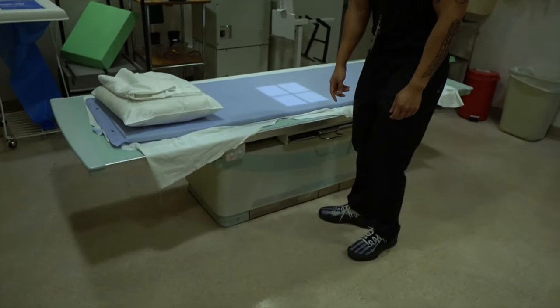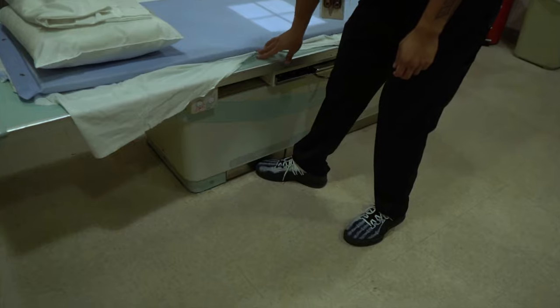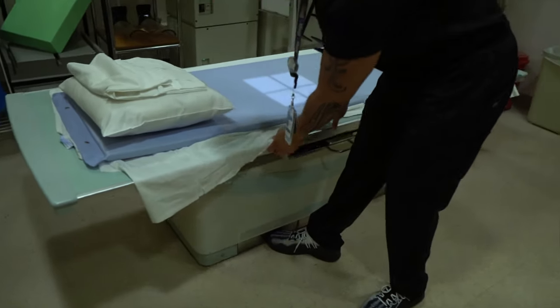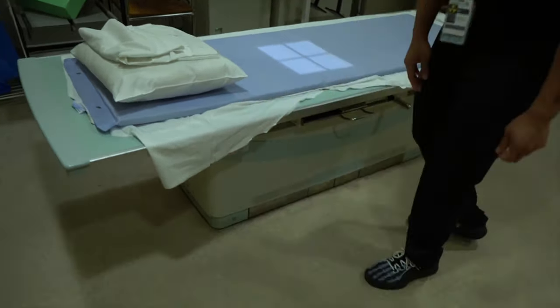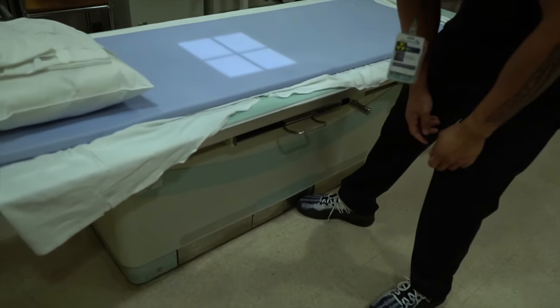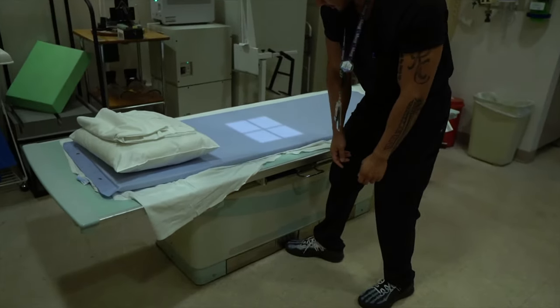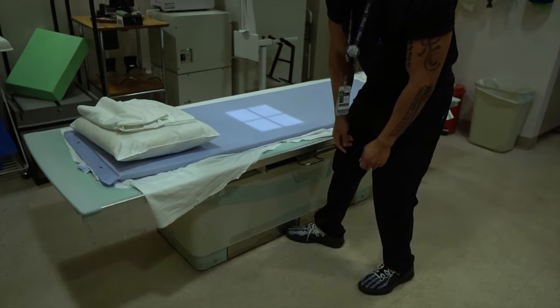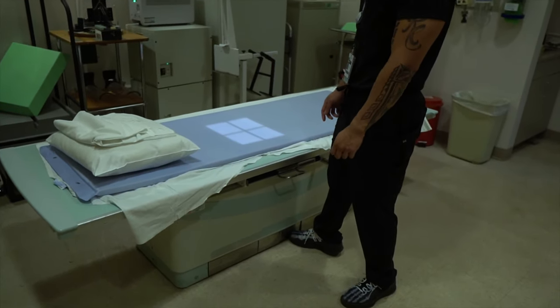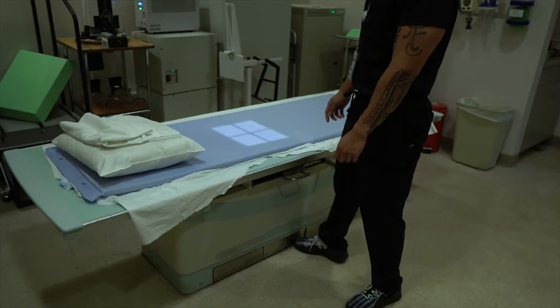On the base of the table we have buttons you can press with your foot. There's a button that allows you to freely move the table every which way, buttons that allow you to move the table up and down, and another button to move the table laterally. Ideally you want the table to be closer to waist level for ergonomic reasons.